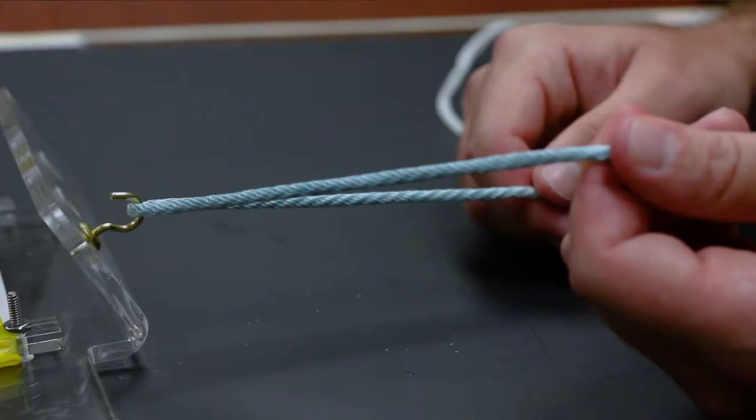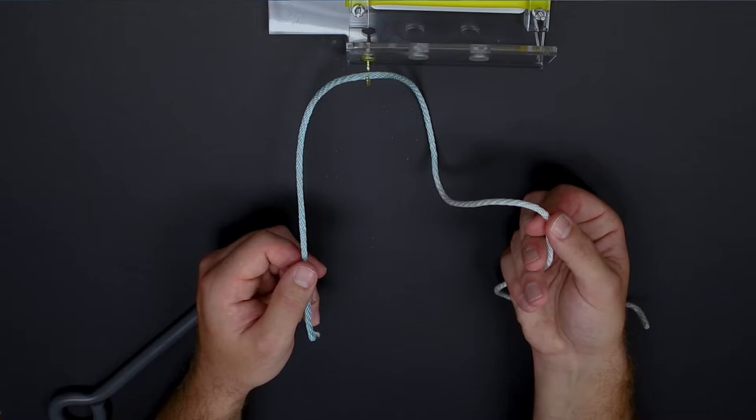The Duncan knot is a sliding non-locking knot. In this video we will demonstrate how to tie this knot by having the post limb in this instance in the left hand colored blue and the loop limb in the right hand colored white.